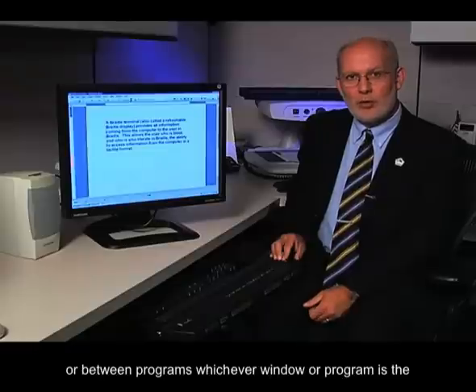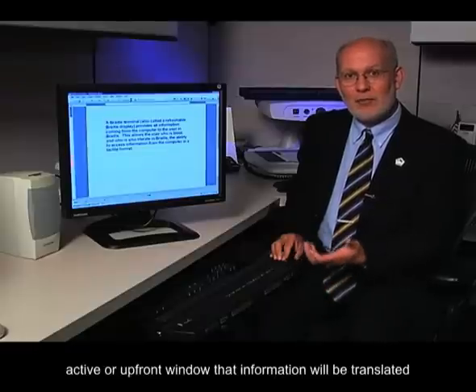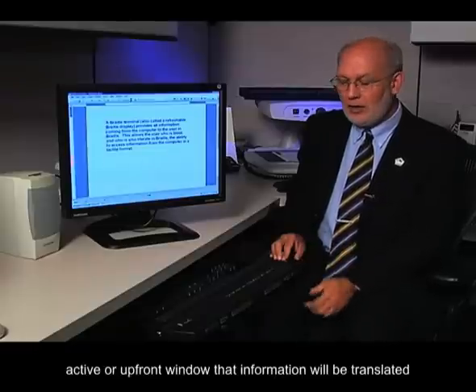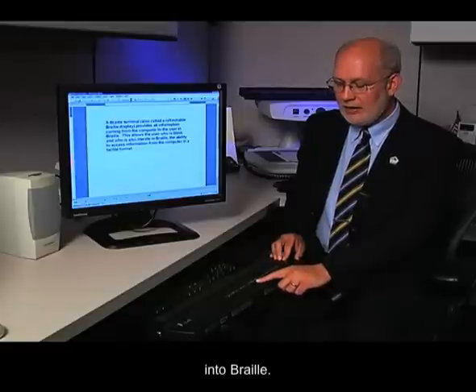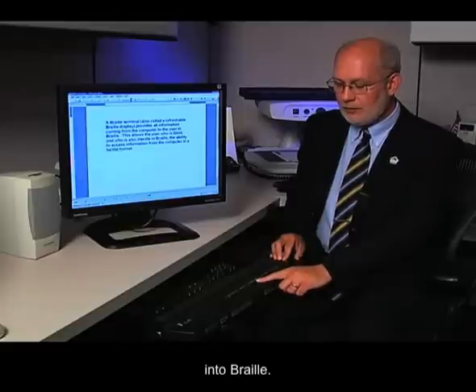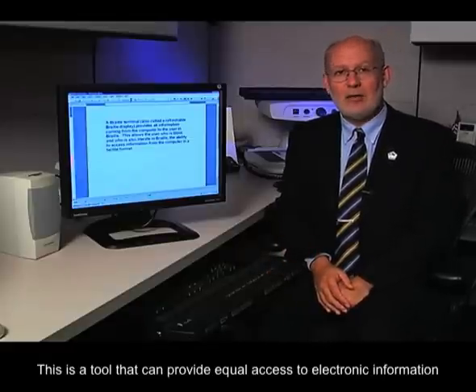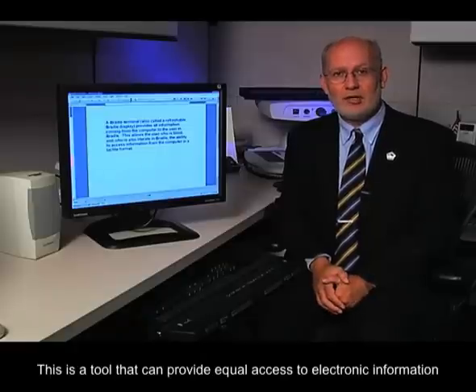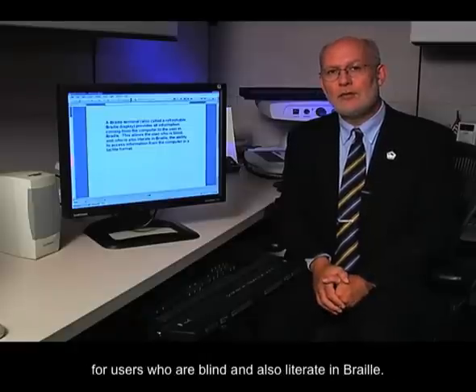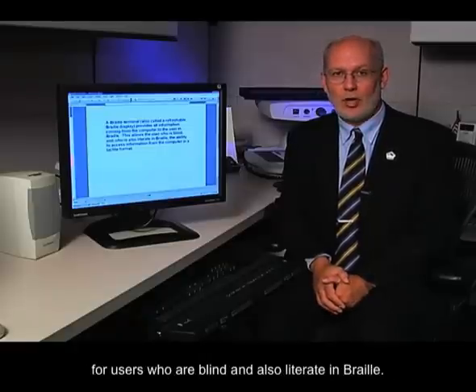Whichever window or program is the active or up front window, that information will be translated into Braille. This is a tool that can provide equal access to electronic information for users who are blind and also literate in Braille.